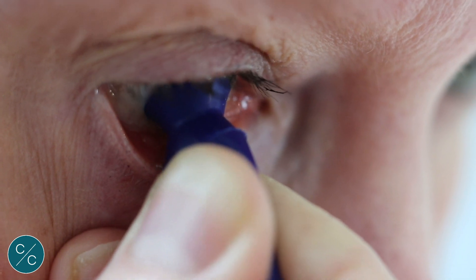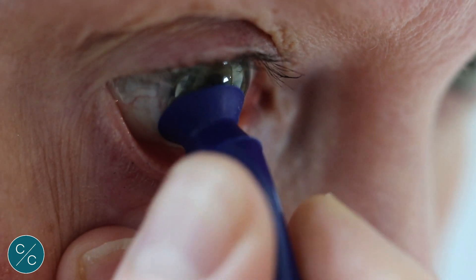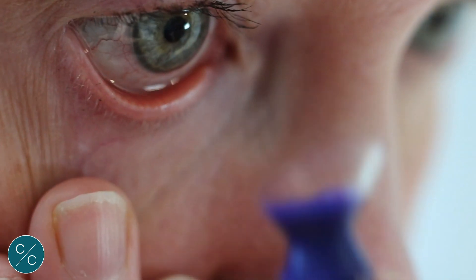Do not pull straight forward — just lift the bottom of the lens to break the suction, and then the lens should come away quite cleanly. Pressing firmly against the lens, release the suction and lifting up and away from the bottom edge of the lens.